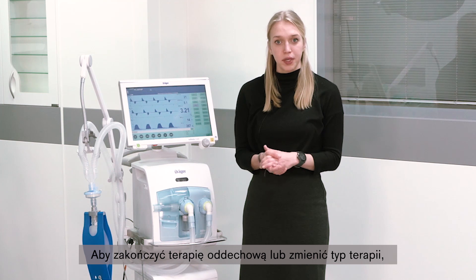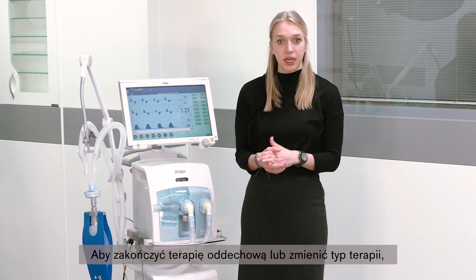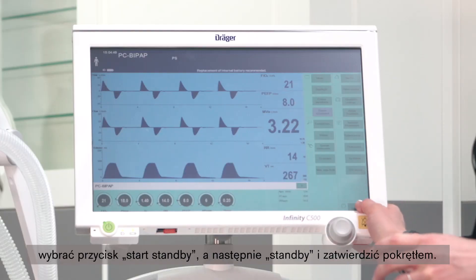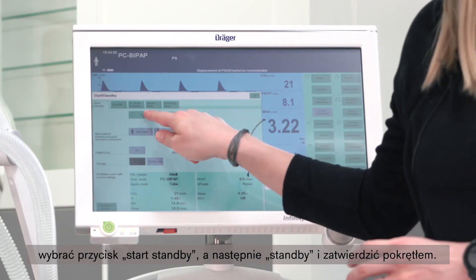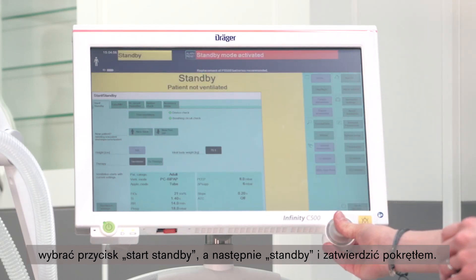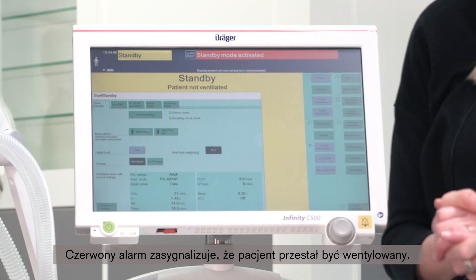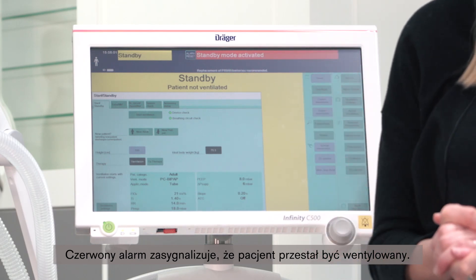To end ventilation therapy or to change to a different therapy type like non-invasive ventilation or O2 therapy, simply select the start standby button, select standby, and confirm with the rotary knob. A red alarm will indicate to you that the patient is no longer ventilated.